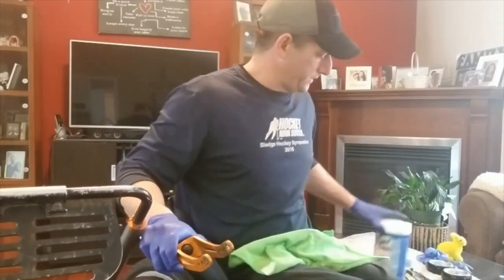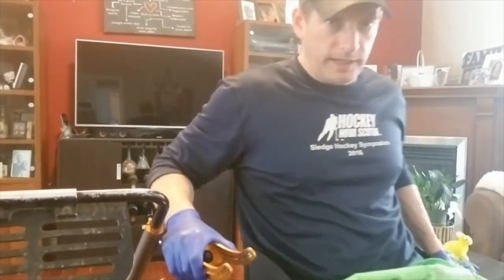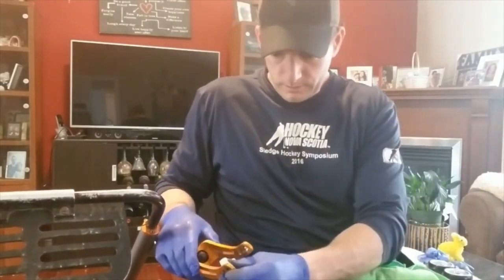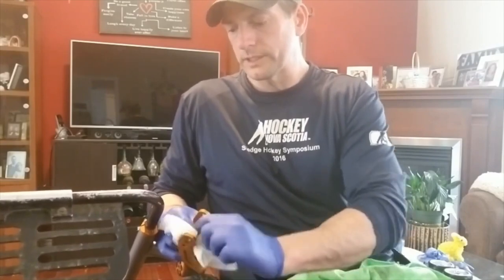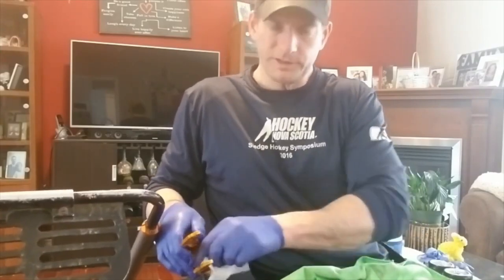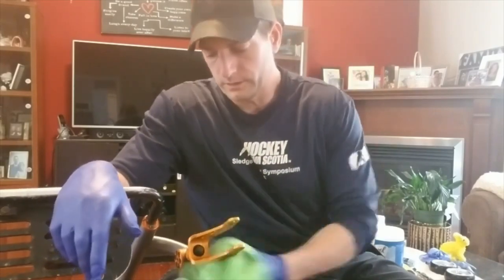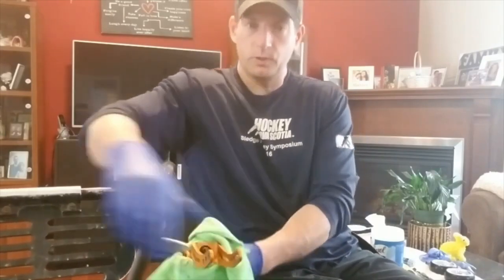It's pretty dirty. You can use a paper towel, a wet or moist paper towel, or a rag. I prefer to use these Lysol wipes — they're easy, just scrub it down. Really dirty — get all that old grease off there. Shine them up a little bit. I got some paint on my caster from painting my chair in the summer, so I got to get that off too. I'll dry it off with just a rag, wipe it down again. And I think we are ready to put a new caster wheel on.